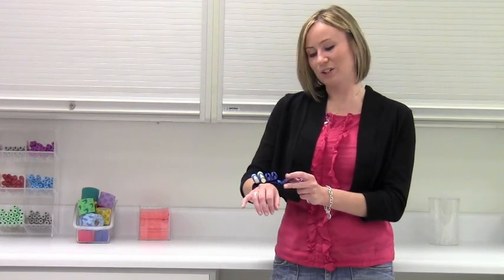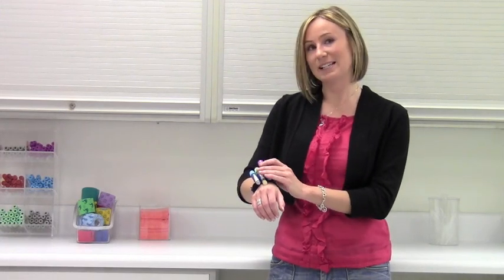The Tube Jockey slides onto your wrist and is held together with an easy piece of Velcro. It holds both 13 and 16 millimeter tubes.